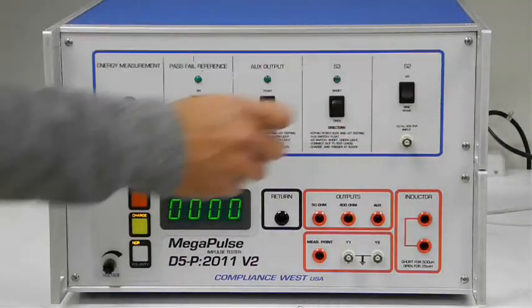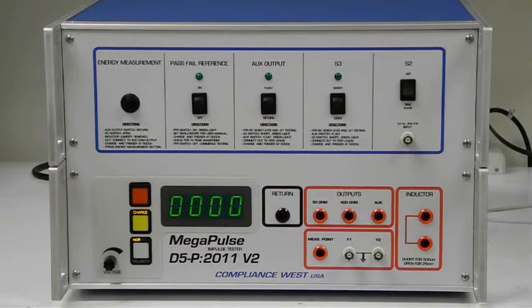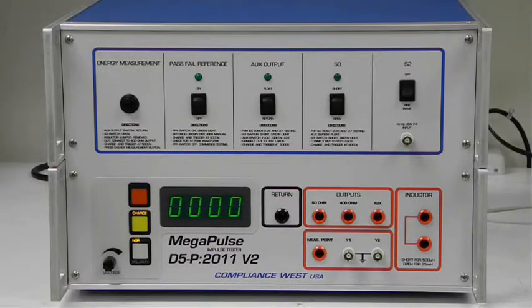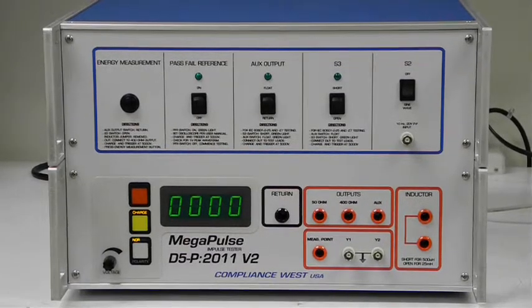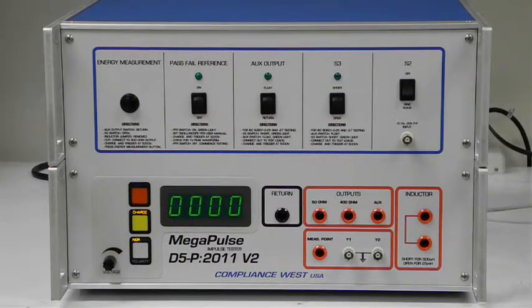For conducting this test using the internal energy calculation circuit, the rear panel connectors are empty.